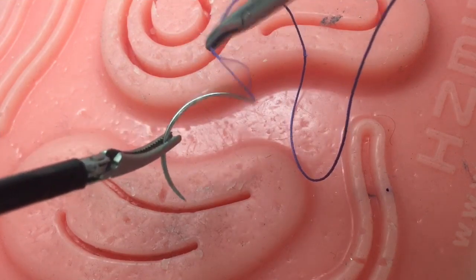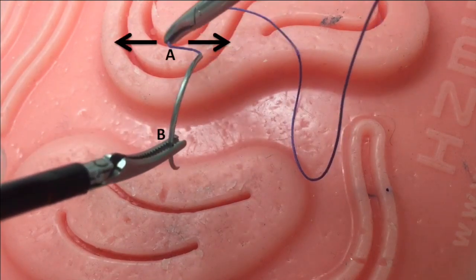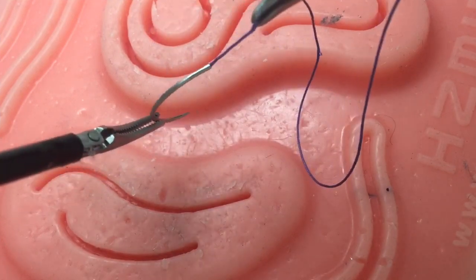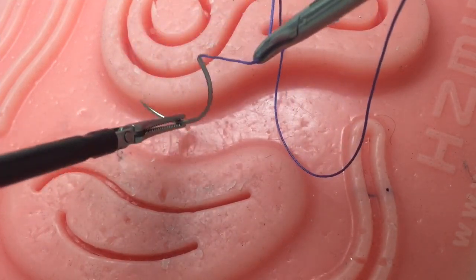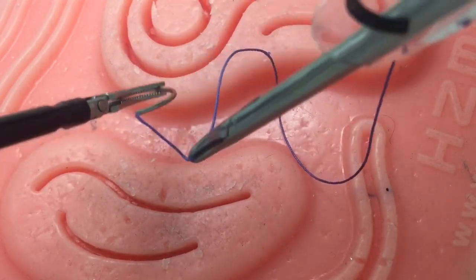While stabilizing your left instrument, with your right instrument gently move in a to-and-fro manner to swivel the needle. With practice, you will be able to move the needle in every direction freely.